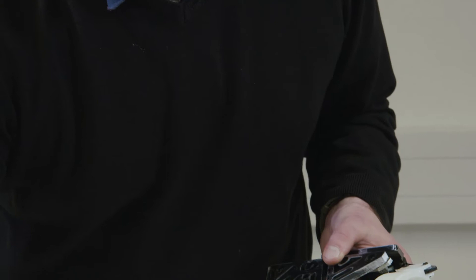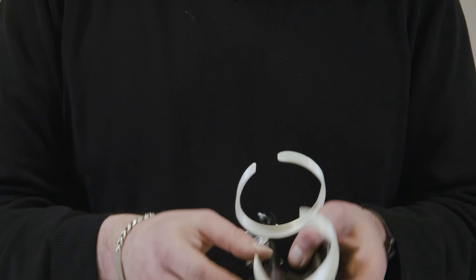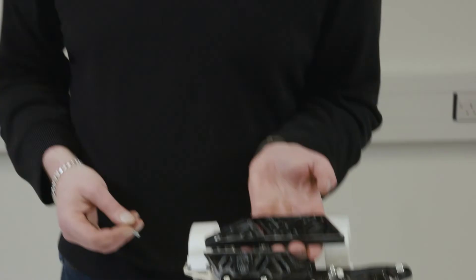Again get myself a nice good sized bolt. I'm going to place this through the hole. And just so you can clearly see this, it's come all the way through the hole. What we want to be able to do is not just support it, we also want to help drive it. Bolts in, we've got it locked into place. Now I could use any of these. This is about holding it in position, ensuring that it's going to be okay.